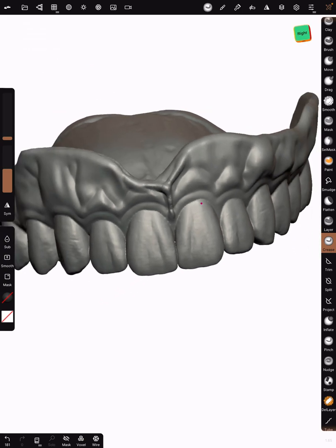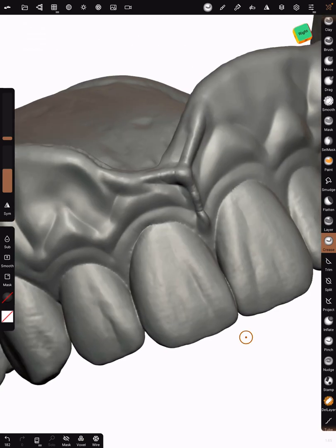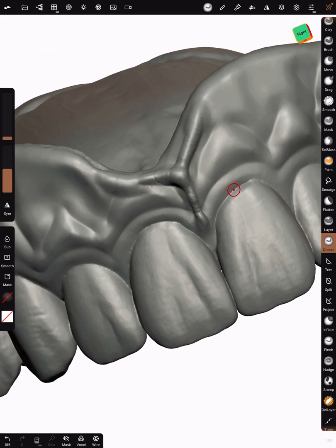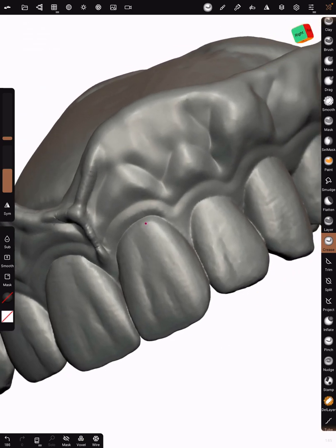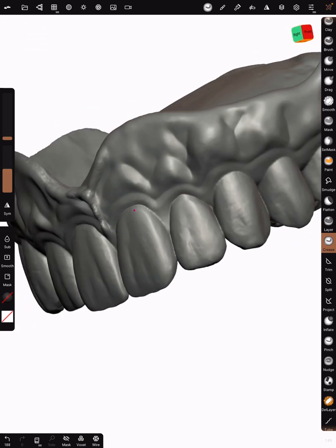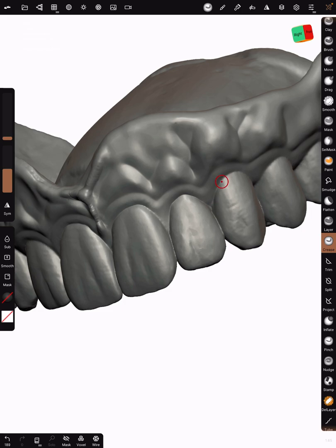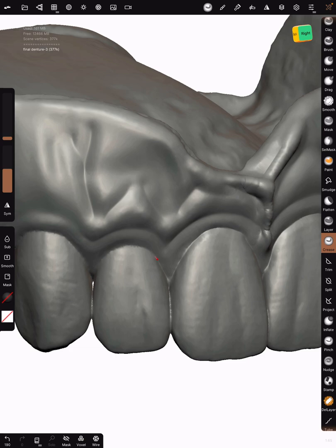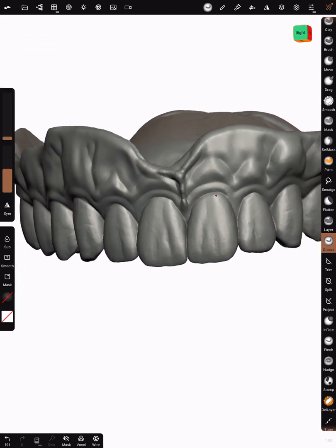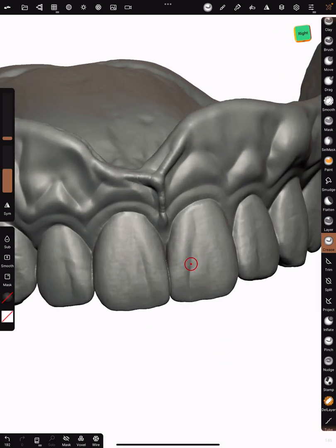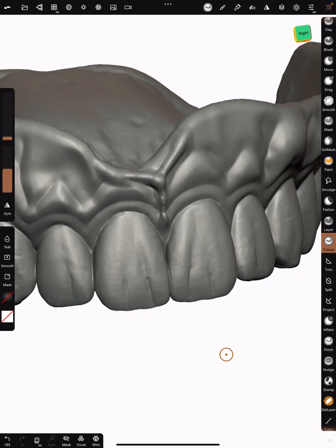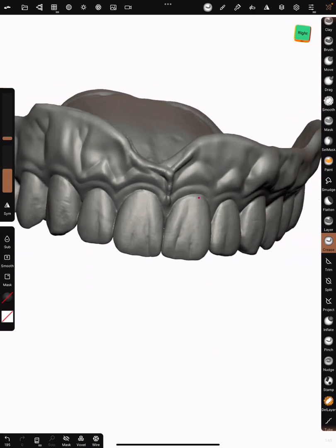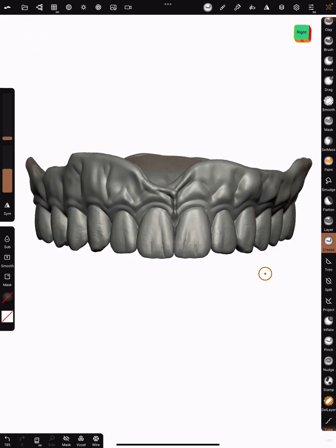What you can also do is if you didn't love your CEJs, you could come in here. You could even change locations at this point if you needed to, make them symmetrical. You've got to be careful here because you could change the whole aesthetic by accident. For example, I can make this lateral a little bit more V-shaped at the cervical than what happened in the design software. I could lower CEJs. You could even on the teeth, I don't recommend this when you're first starting out, you could start to accentuate some anatomy here. So this is getting close.